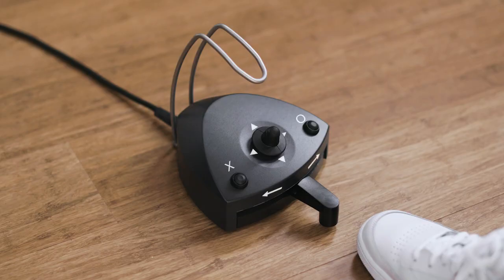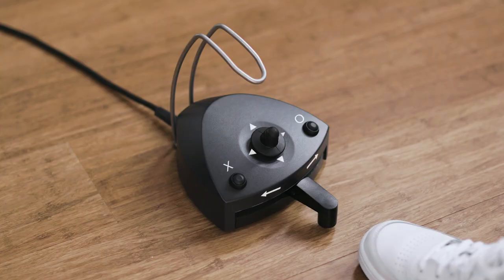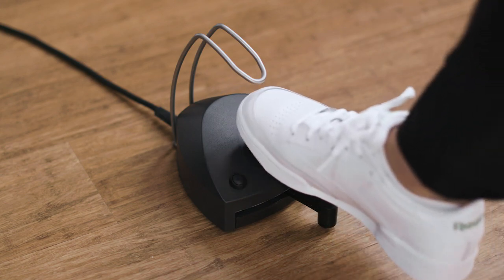You can choose between three maximum speed levels. The maximum speed will increase when you move the joystick north, and will decrease when you move the joystick south.